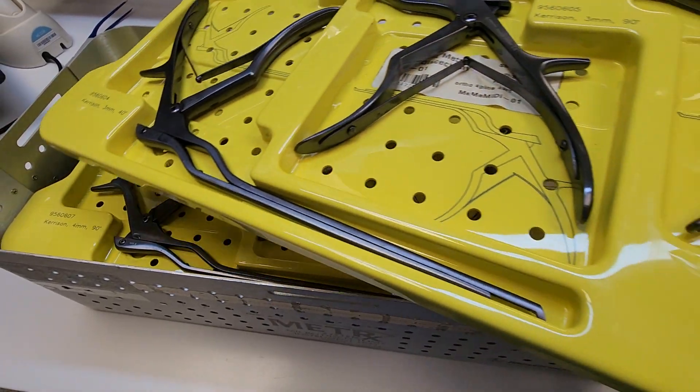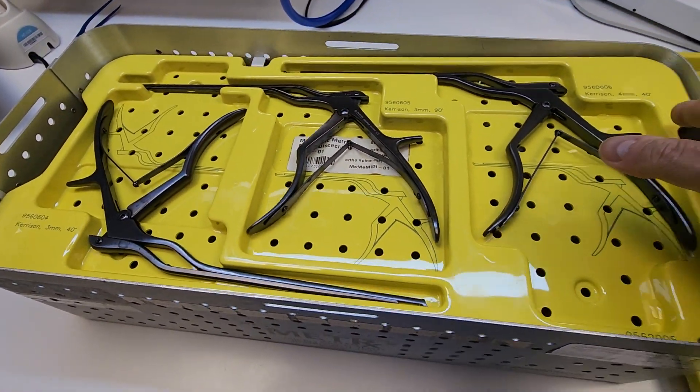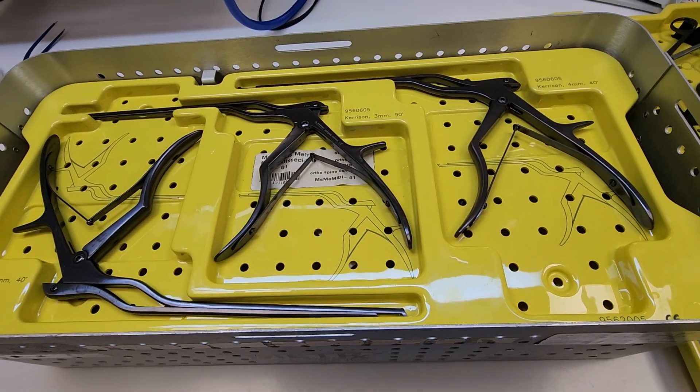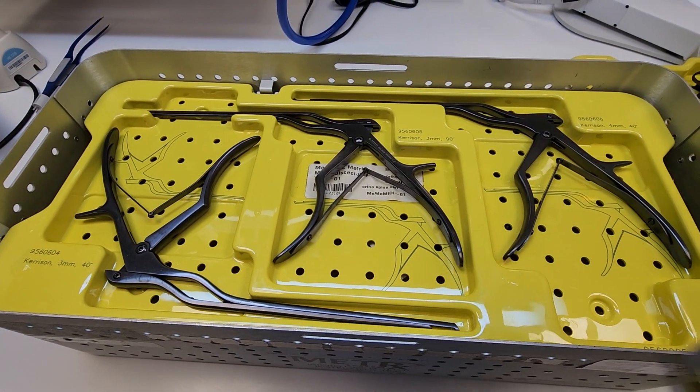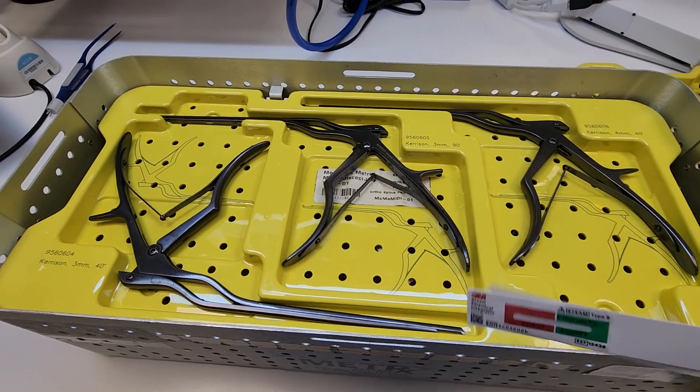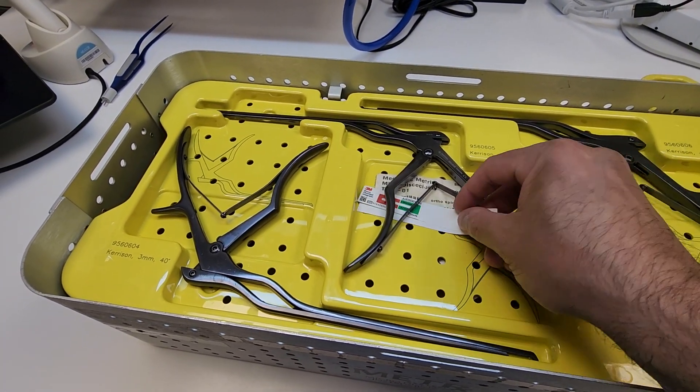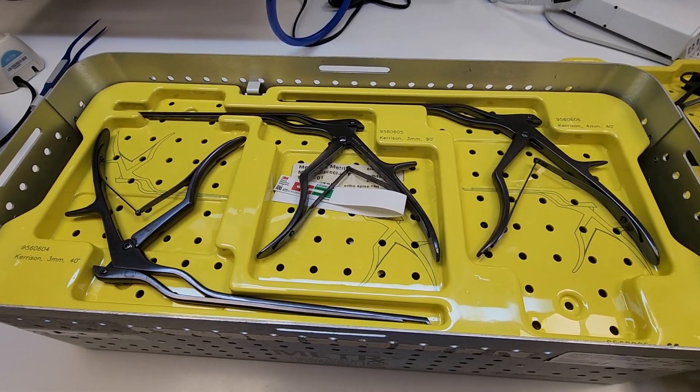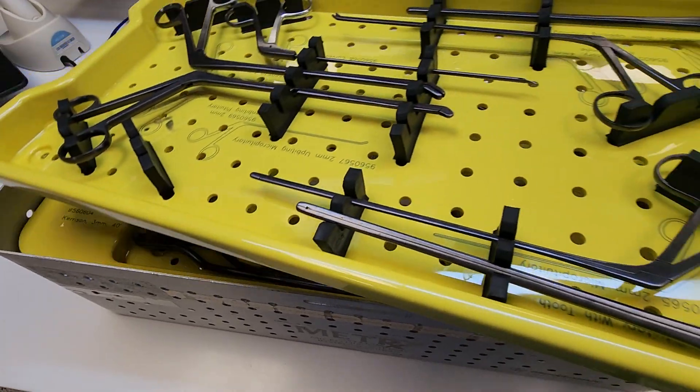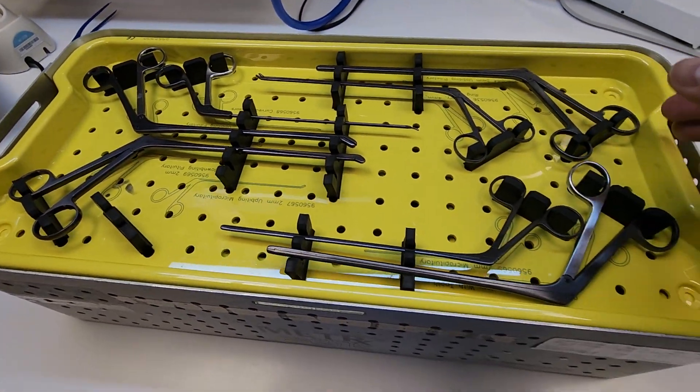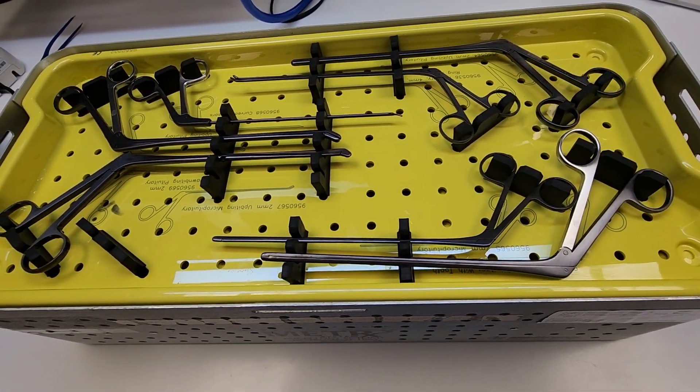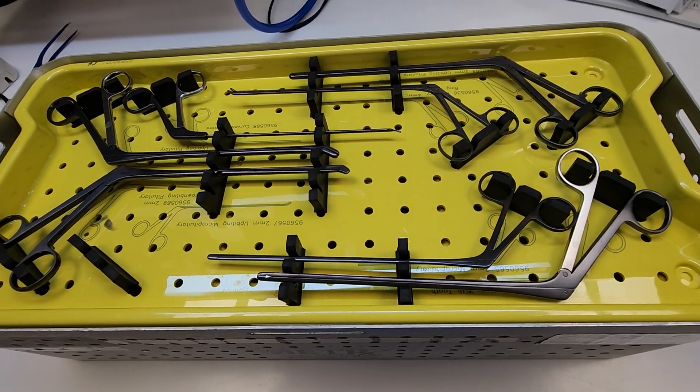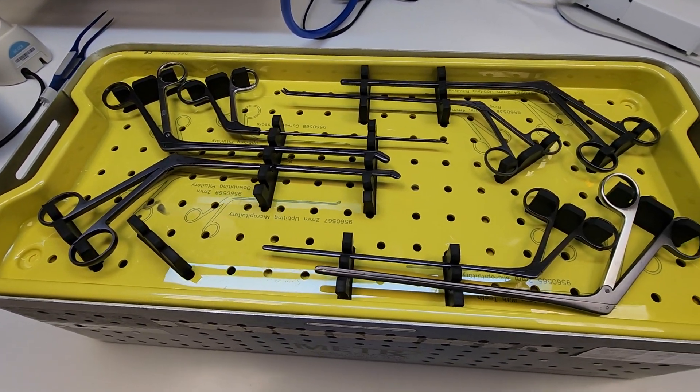We have four indicators. Now bear with me guys, I am working with one hand here. And then we have the final indicator, which is the fifth indicator, geometric center of the tray, and then we wrap.